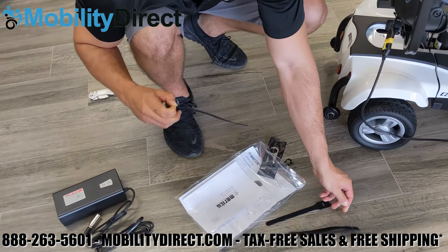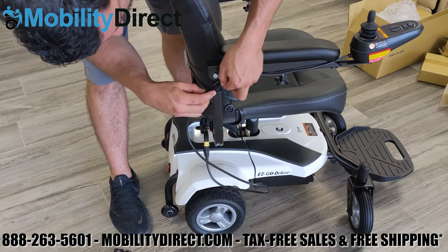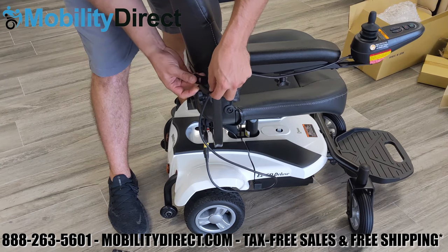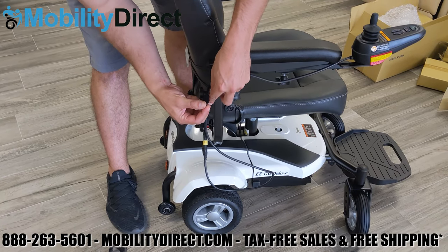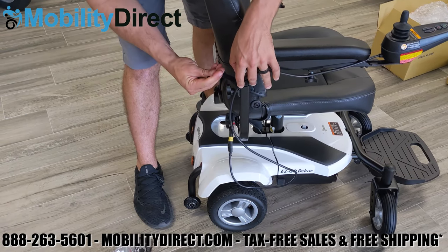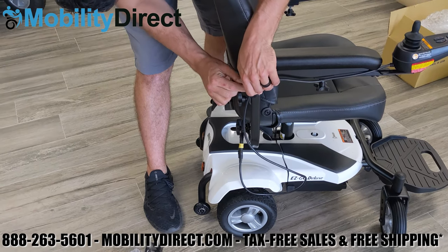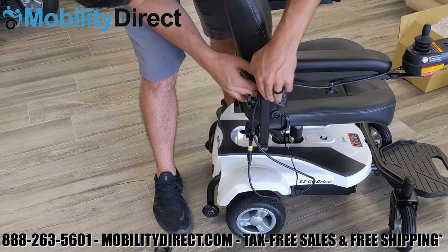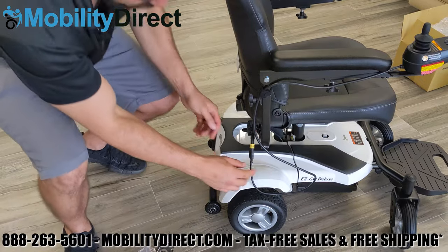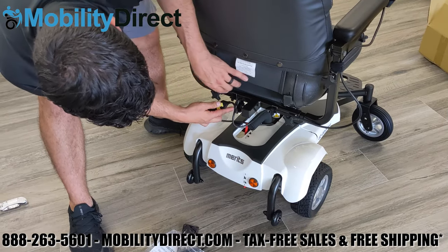As you can see, there's really not much to it. You just want to make sure that the cable is nice and secure and out of the way so that it doesn't get pinched on anything as you're driving around. Put one of the straps at the corner where the 90-degree angle meets the armrest pad, and make sure the cable is not too far out. Use the provided clips on the backside next to the tension adjustment knobs to keep them secure.